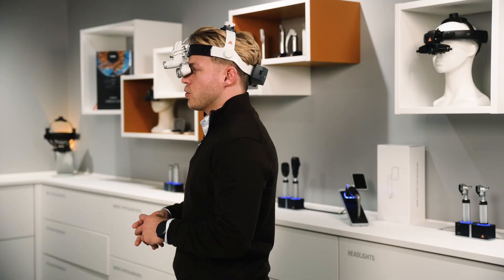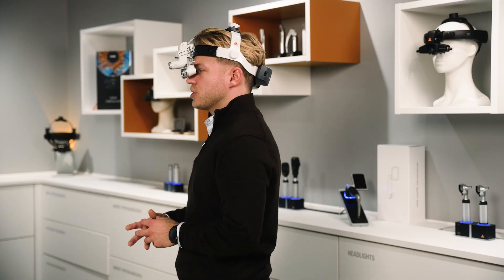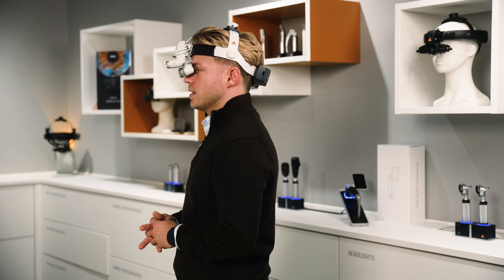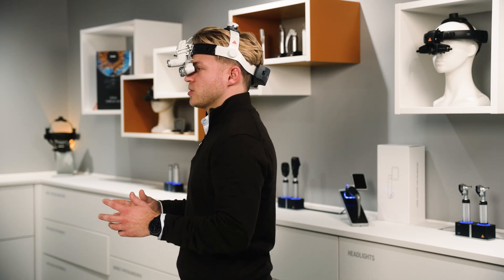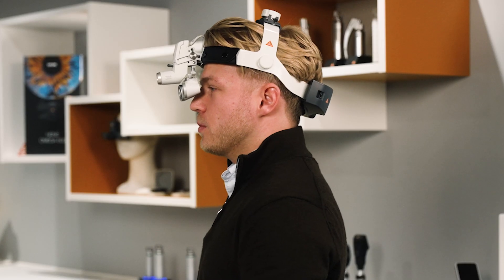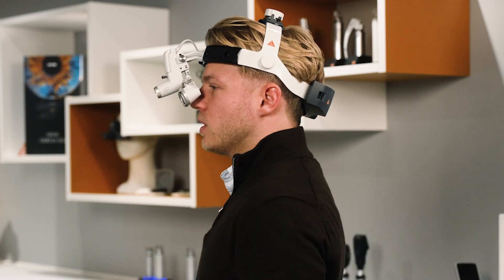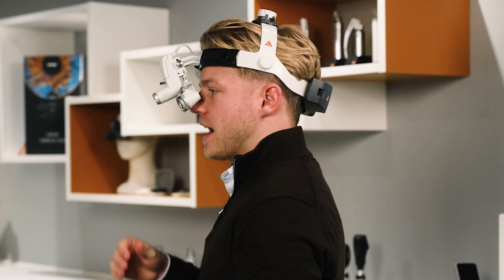Depending on what you need to do, whether you work standing or sitting, you can always readjust the headlight and the loops to get the best field of view. This is particularly helpful for longer procedures. Readjusting will help you find the best angle of view to help achieve a comfortable position and avoid straining and bending your neck.